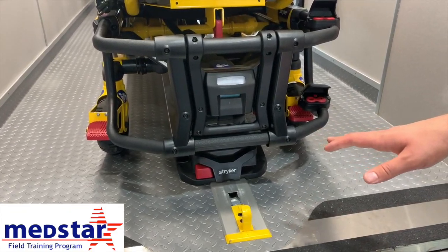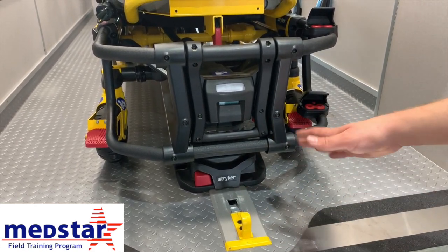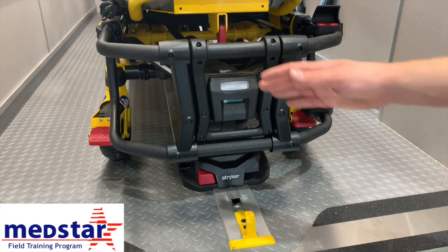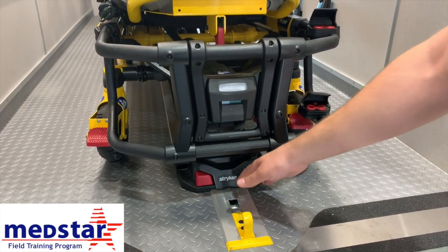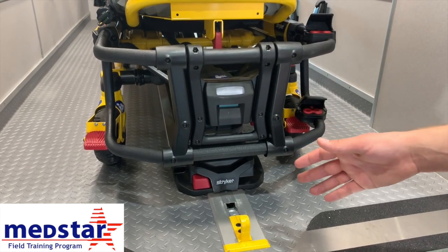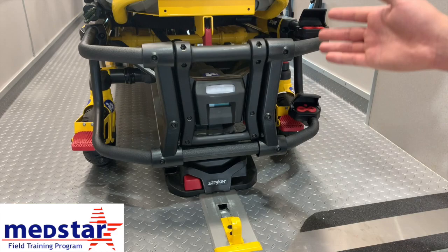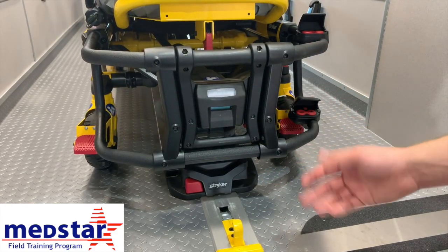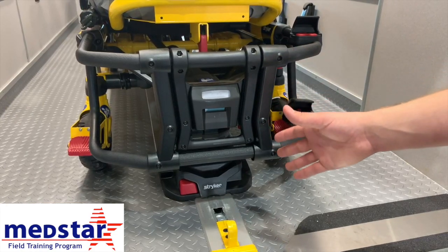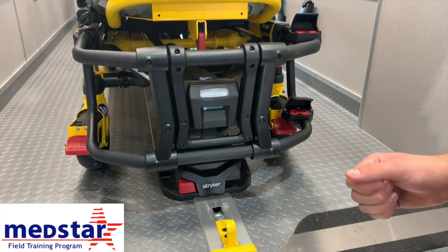We're going to talk about the center mount system involved with the Power Stryker stretcher. The Stryker center mount system is the same for both the power Stryker and the manual Stryker. Any trucks that have the center mount Stryker system — these stretchers will be compatible with them, whether it's currently a manual Stryker stretcher or not. The power ones will latch into those trucks, which makes interoperability easier. These stretchers will also be in our new BLS units as well as ALS units moving forward.